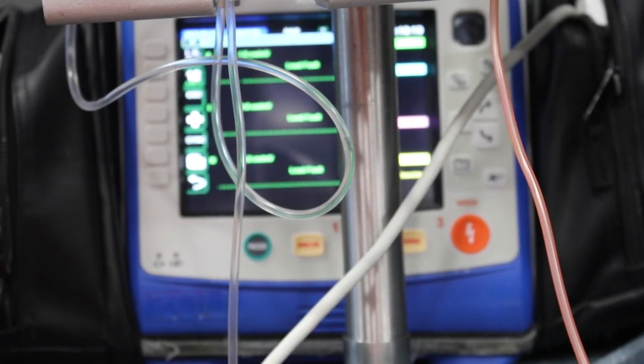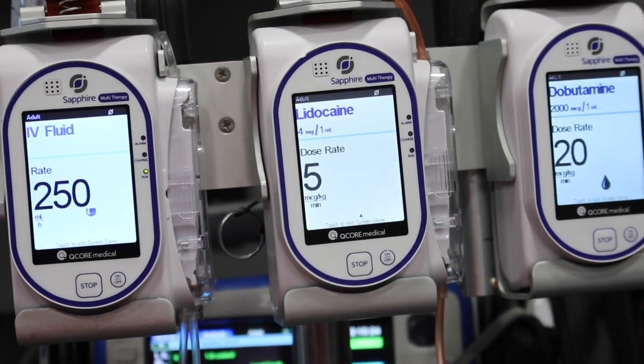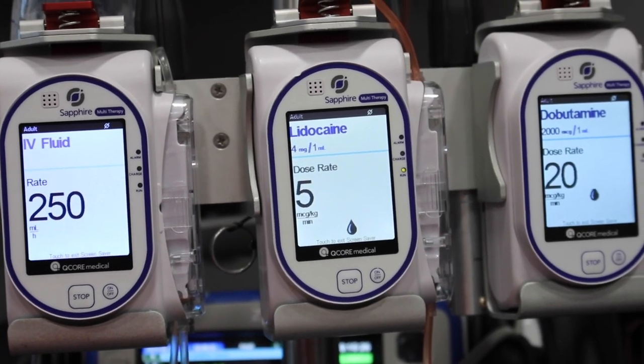Just the simple fact that there are about 40 different clinical care areas within the pump itself, and each one of them can hold like a thousand medications. So you can put any formulary — any med, the concentration, whatever you could possibly use within your med set — and just literally with the touch of a button, you can pull up that medication for easy administration.